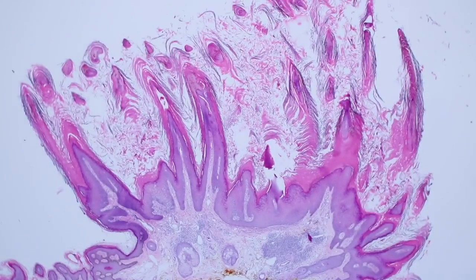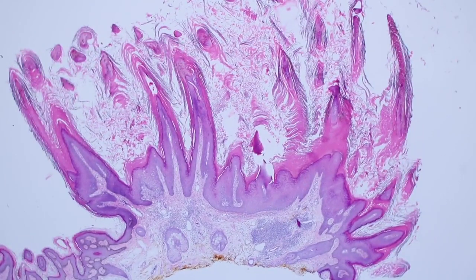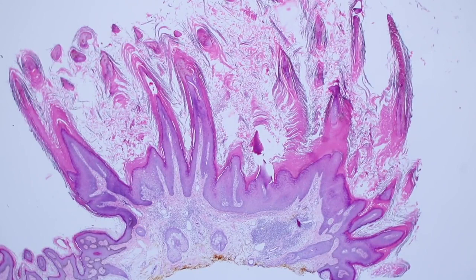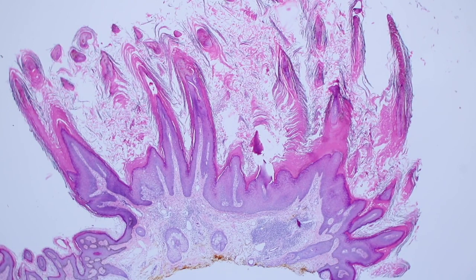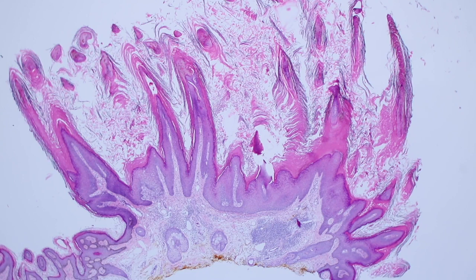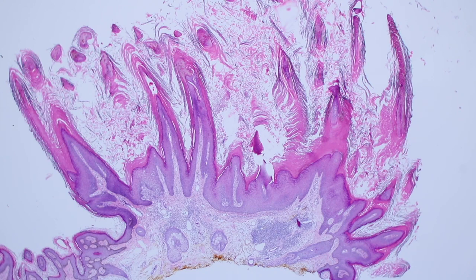This is a great example of a wart, a Verruca vulgaris. There are a lot of different types of warts and we could probably do a whole video just on warts because warts are common. We see them a lot and they can occasionally be diagnostically tricky, but I think this is a real classic one.